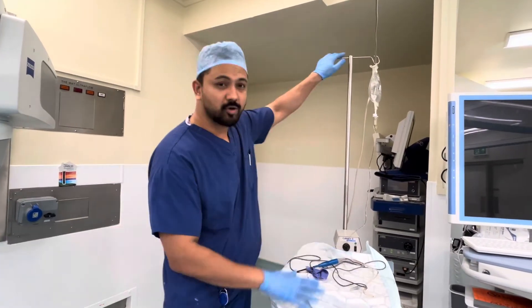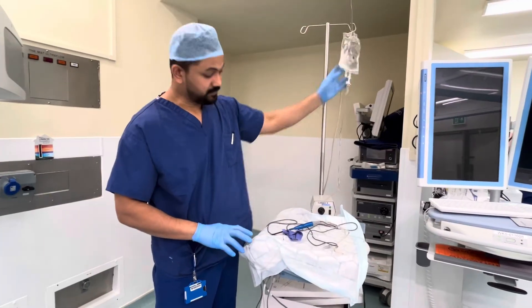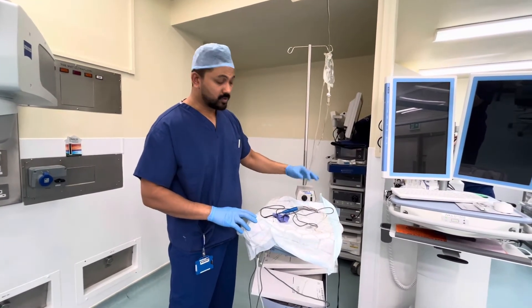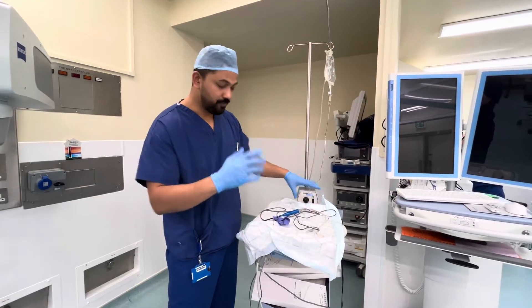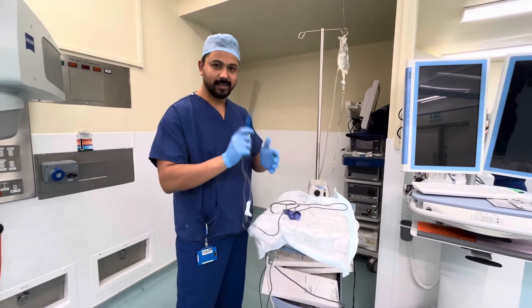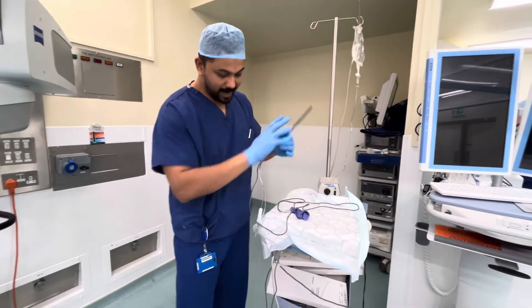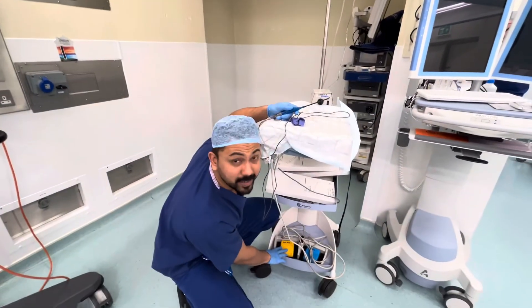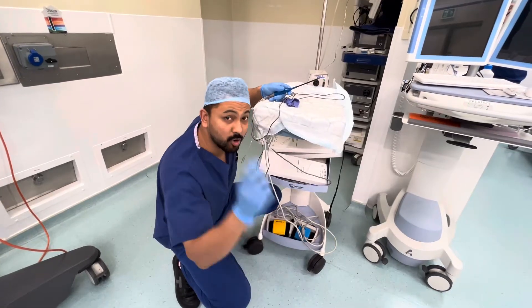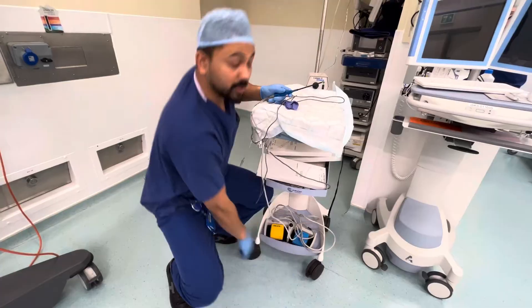So let me show you what it is exactly. This is the coblation system. There is this bag of saline — this is the fluid which goes in and controls the flow. This is a wand, like the Harry Potter wand — we call it wand. And then we have a controller foot pedal.